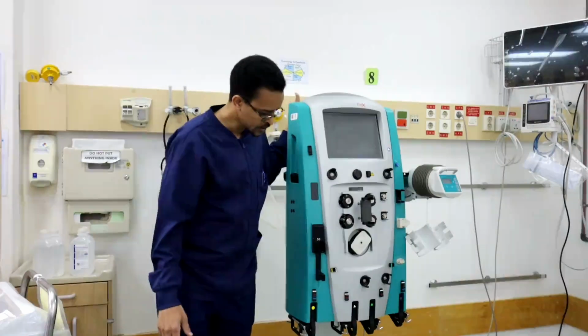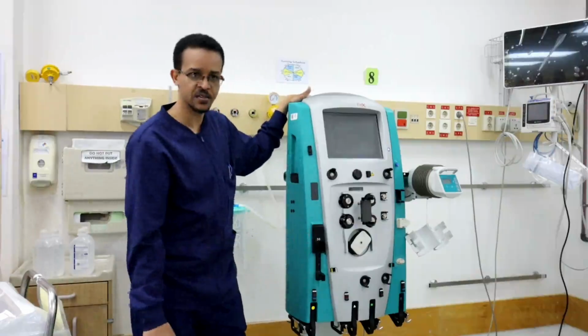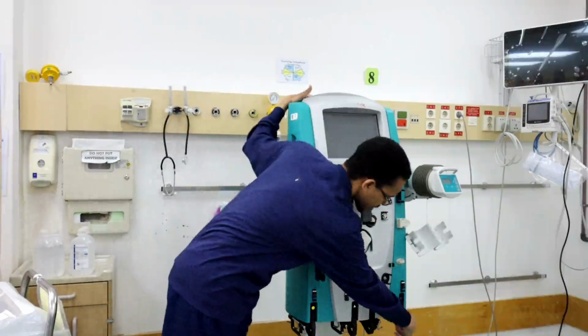Okay. Finally we have the scales. These are called the scales.